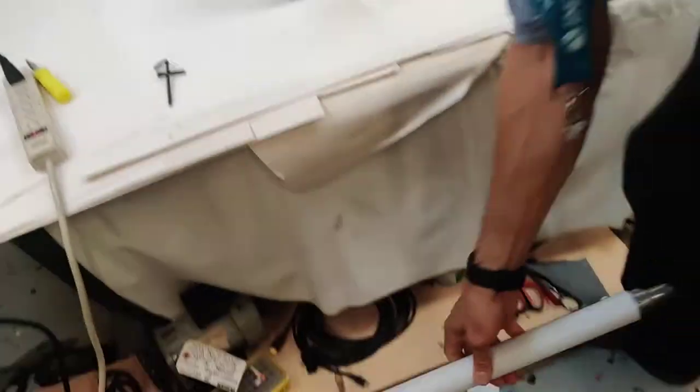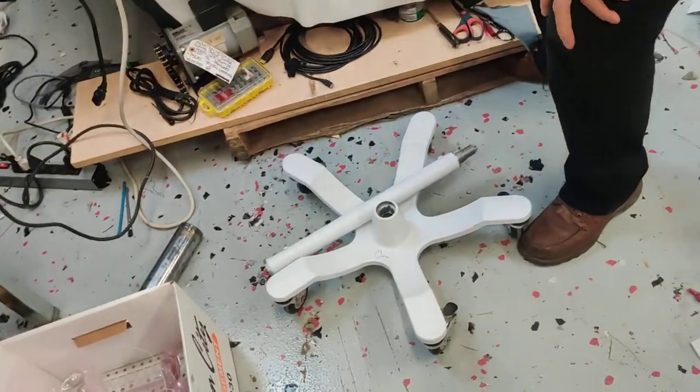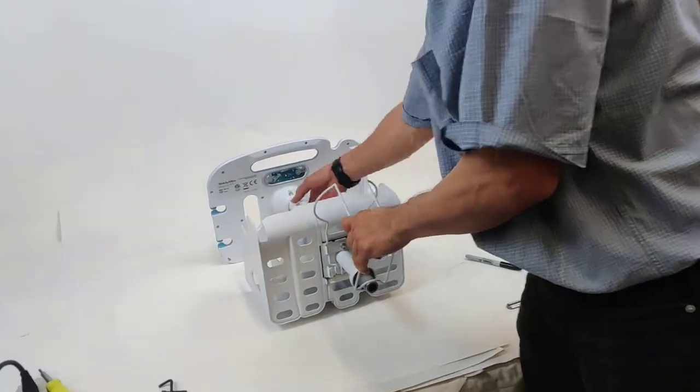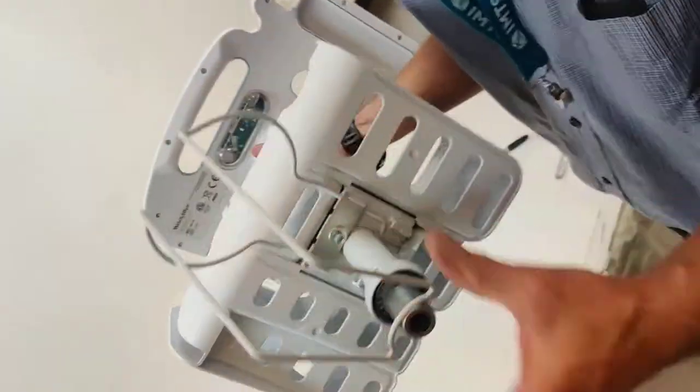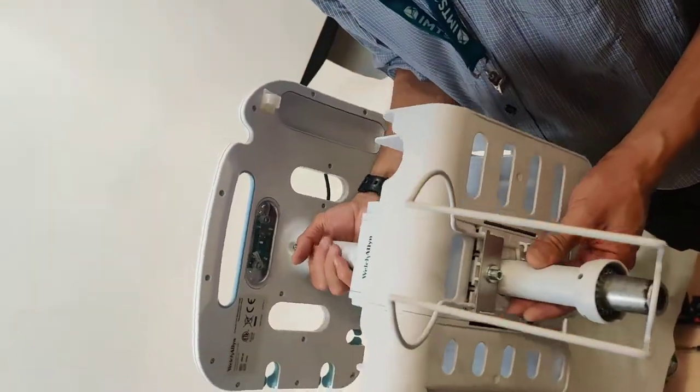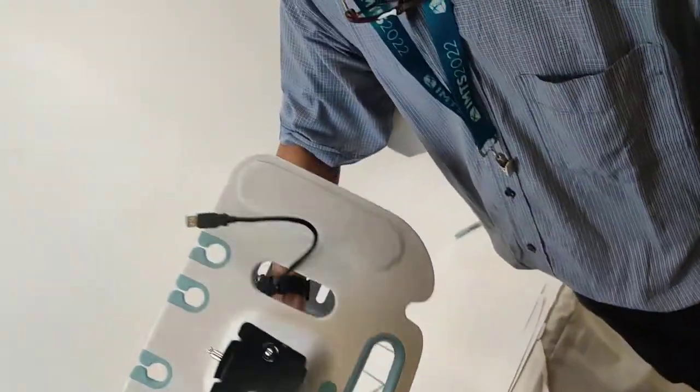Here it goes. So you have three different parts: one, two, and three. You can pile up this part. In this part you can just pile it up.